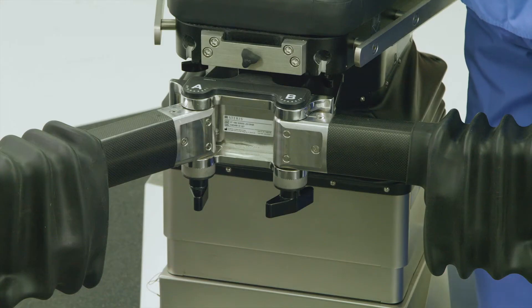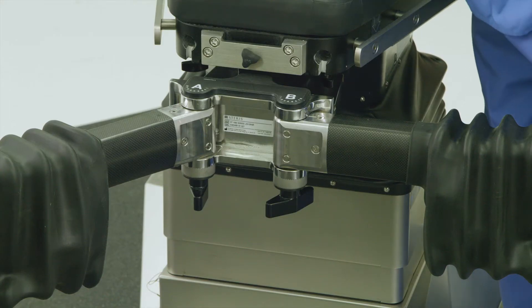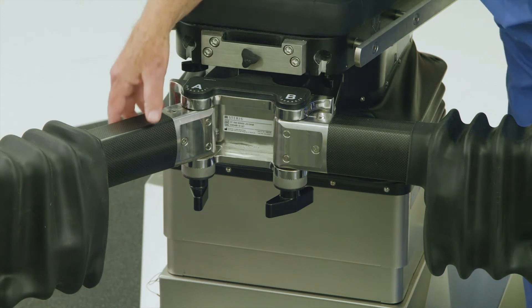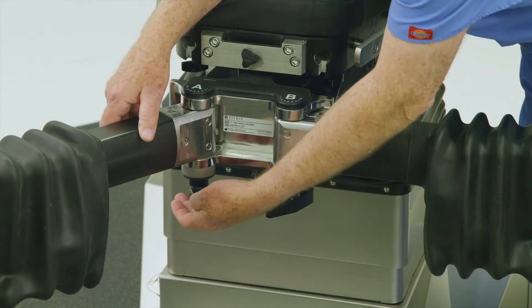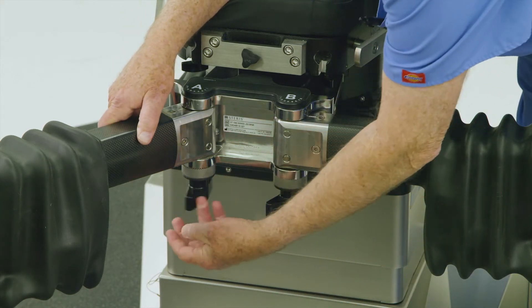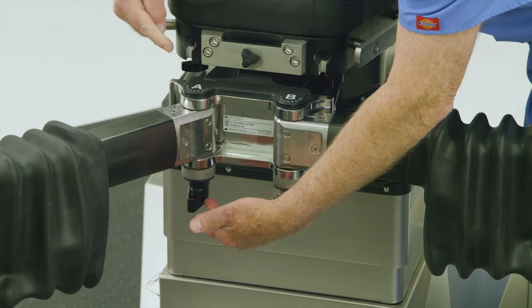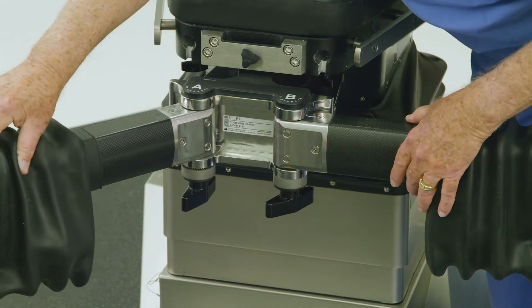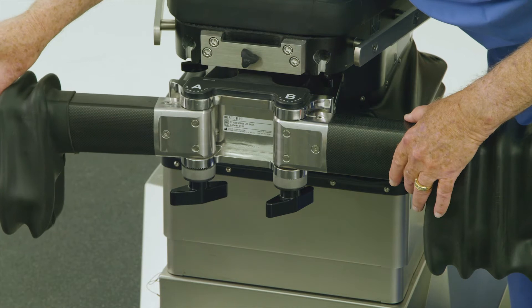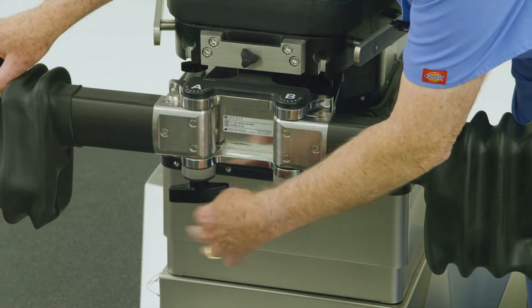To position the abductor spars for an IM nailing in the supine position with unilateral traction for an operative left leg procedure, begin by loosening the knob below the A rosette and set the A joint to the X position, then re-lock the A rosette handle.